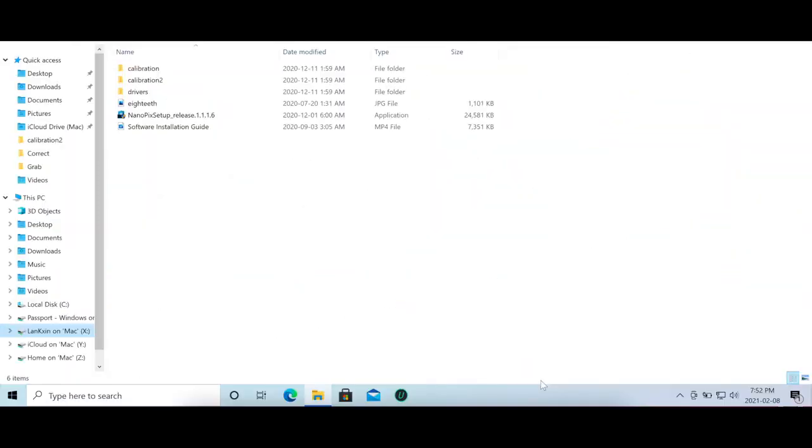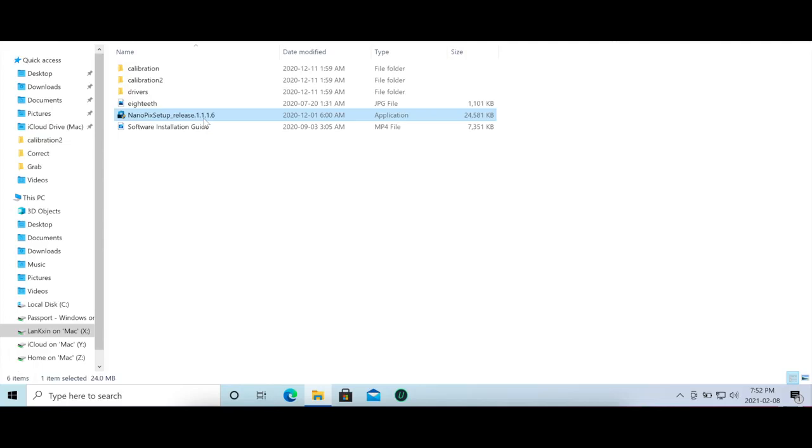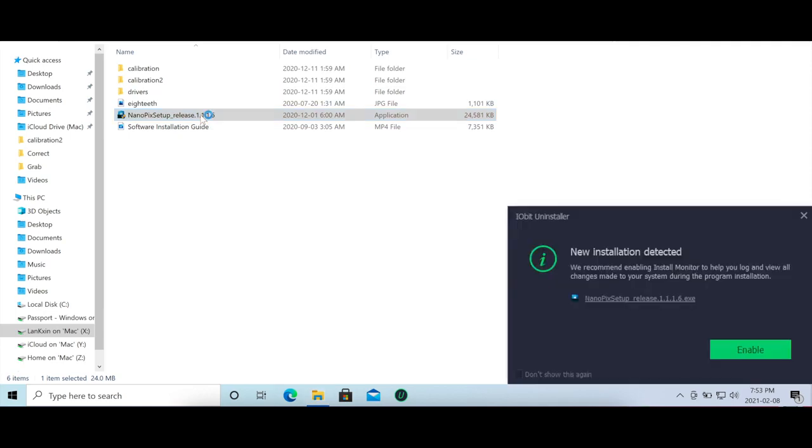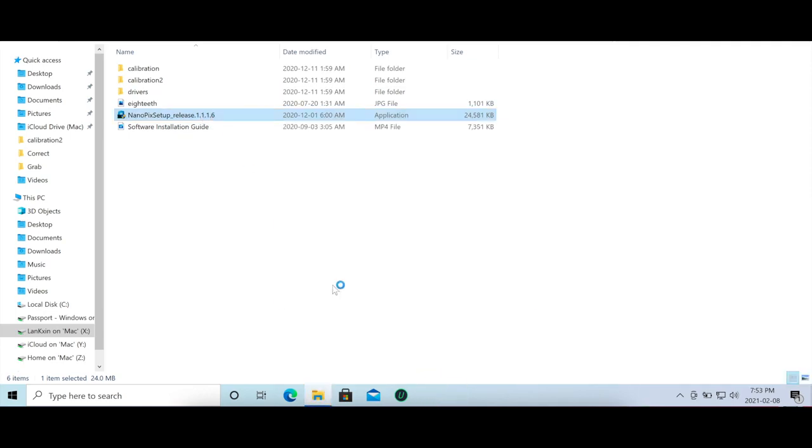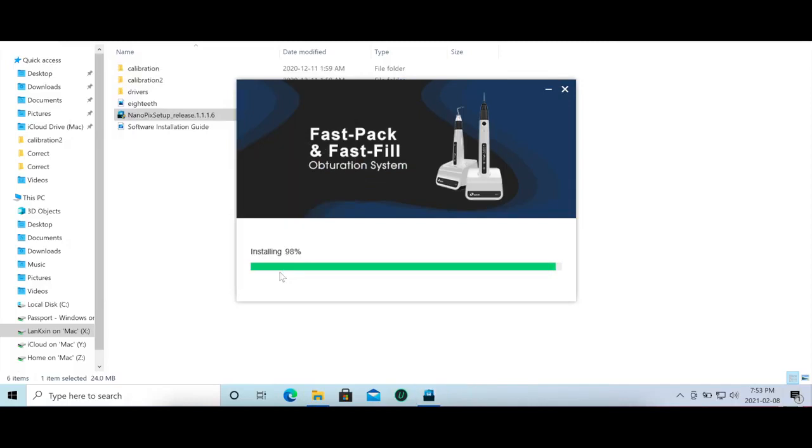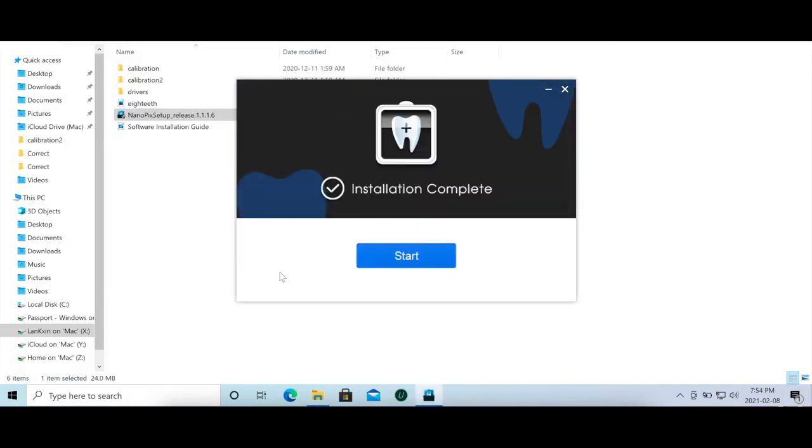Okay let's get started with installing the software. After connecting the USB key you can go ahead and click the installation application. This program is super small and honestly it's as simple as 1-2-3 to install it by yourself. The installation takes only about three minutes and then we're ready to rock. Alright and now we're done.